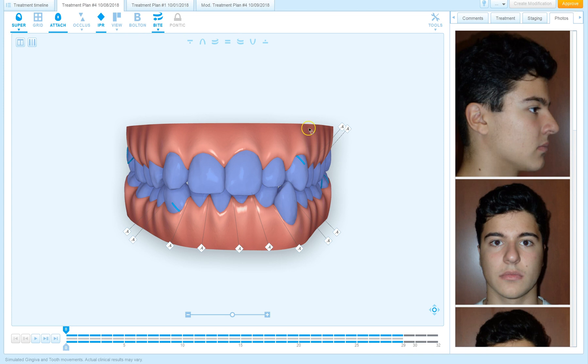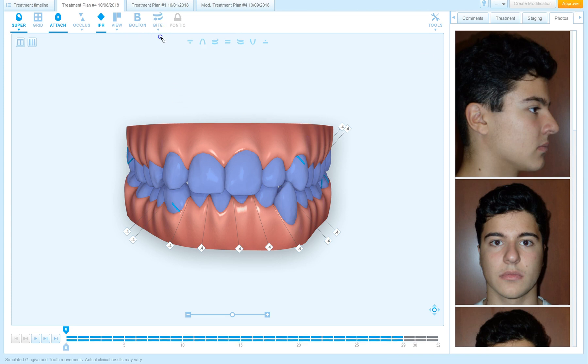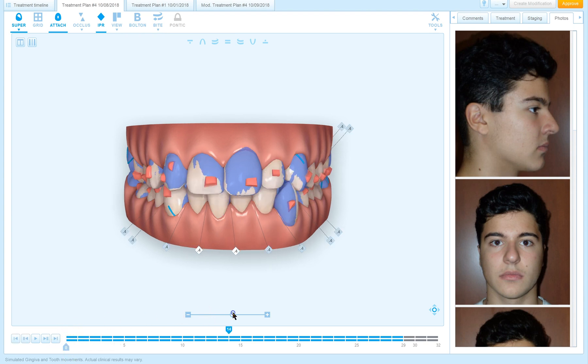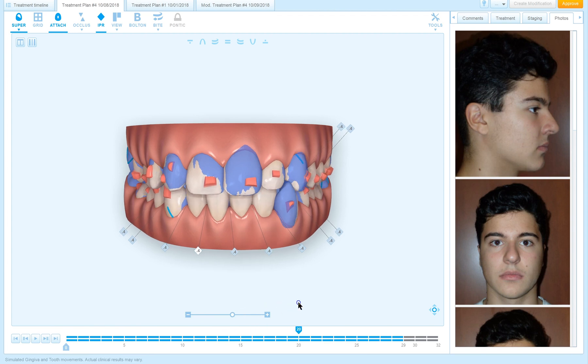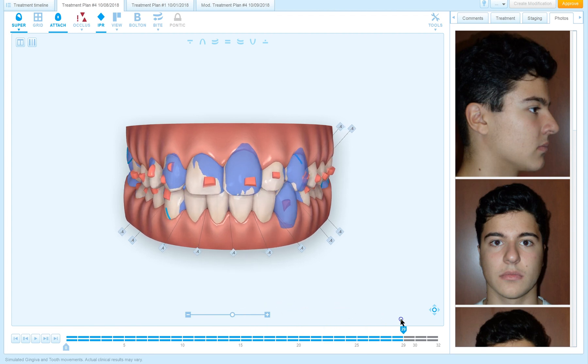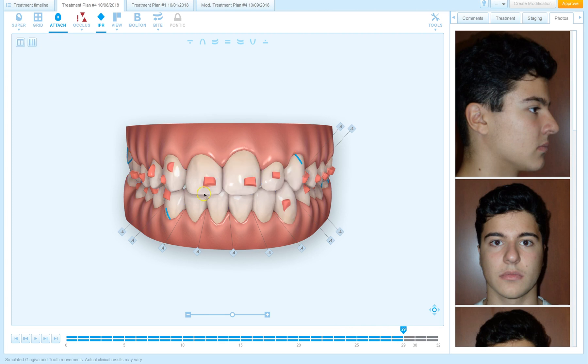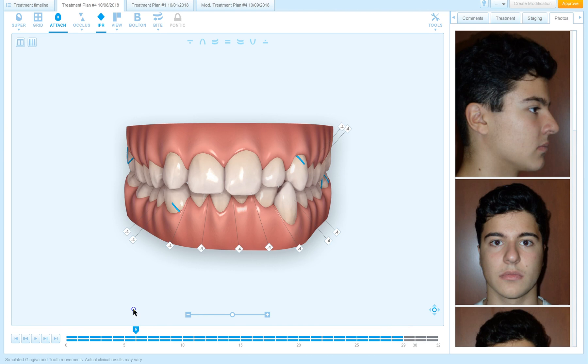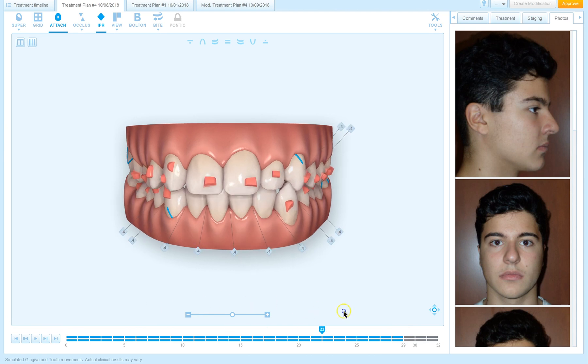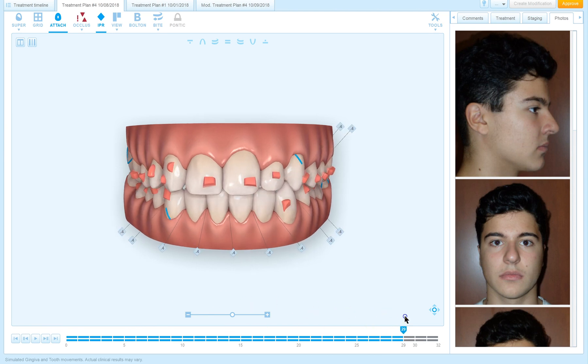But the question is, what if I - you see I'm ready to approve, so my approve sign is here - which tells me that by changing the bite jump, let's say I hide the correction altogether. Now the gray line has disappeared. You see a bunch of aligners they look just like the aligners that I had before, but this time the midline is not corrected, the upper midline didn't move over.